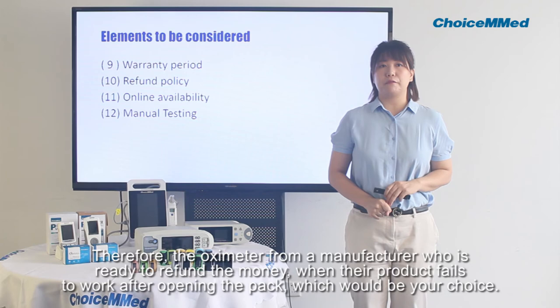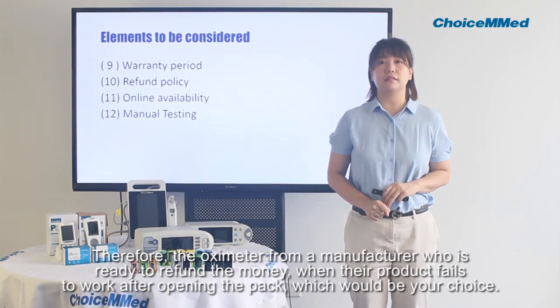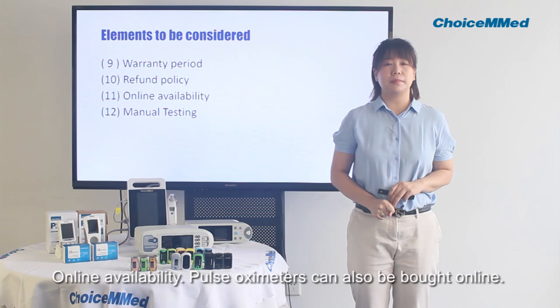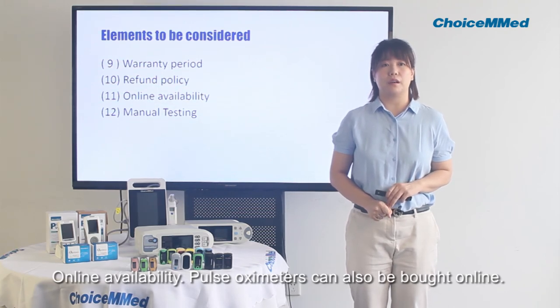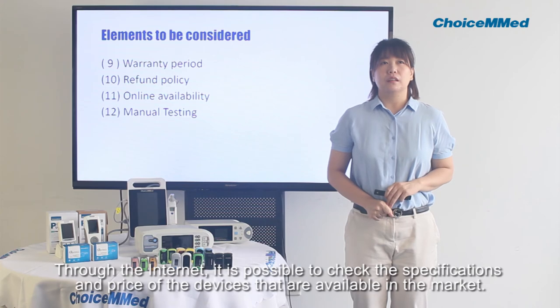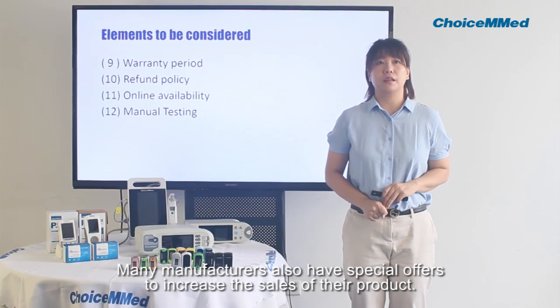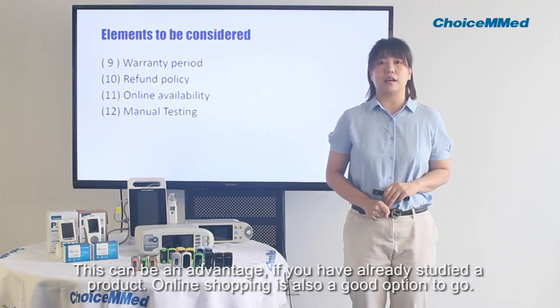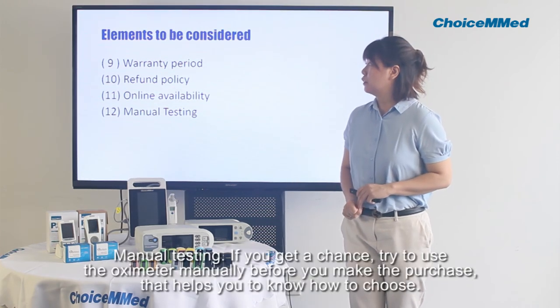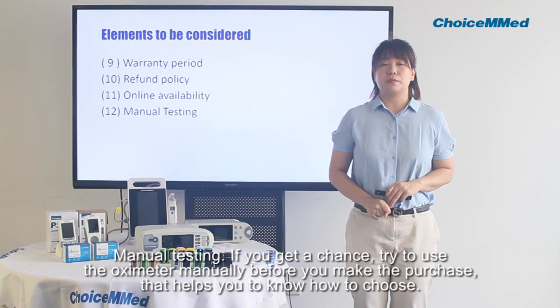Therefore, choose an oximeter from a manufacturer who is ready to refund your money when the product fails to work after opening the pack. Oximeters can also be bought online. Through the internet, it is possible to check the specifications and price of devices available in the market. Many manufacturers also have special offers to increase sales, which can be an advantage. Online shopping is a good choice. If you get a chance, try to use the oximeter before you make the purchase, as that helps you know how to choose the right one.